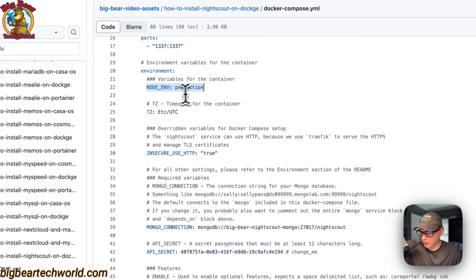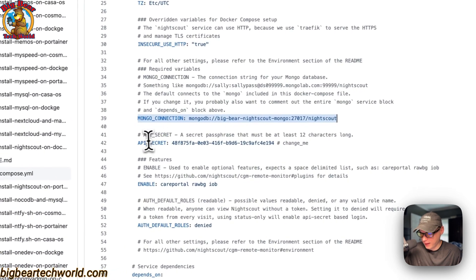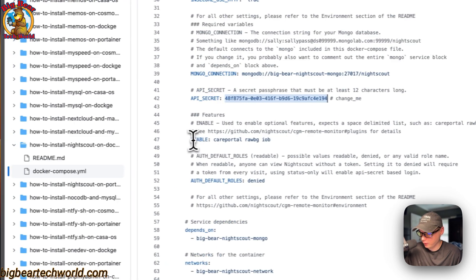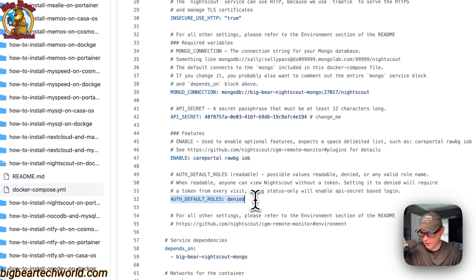Now for environment variables: NODE_ENV is set to production. The timezone — I would change this to your own timezone. INSECURE_USE_HTTP is set to true. The Mongo connection and the API secret — I would change this to another UUID v4. This is used to get into the UI, so it's essentially a password. Enable is set to careportal, rawbg, and iob. AUTH_DEFAULT_ROLES is set to denied.